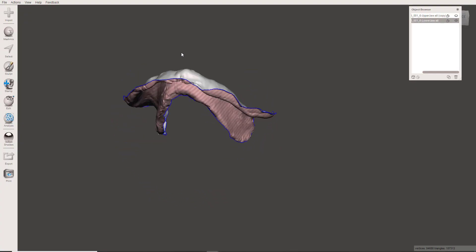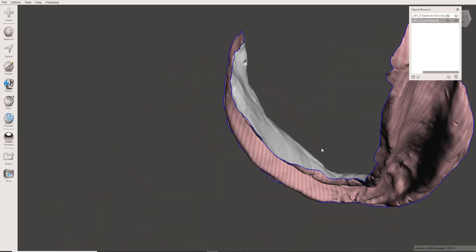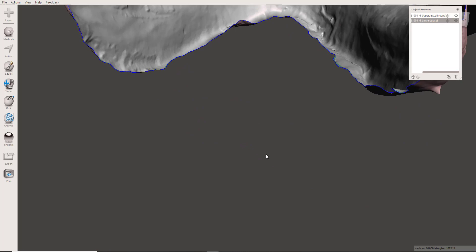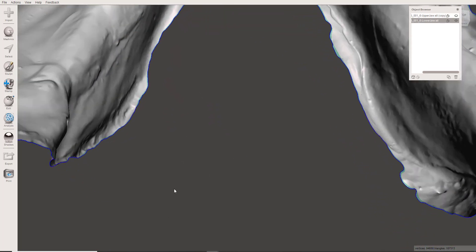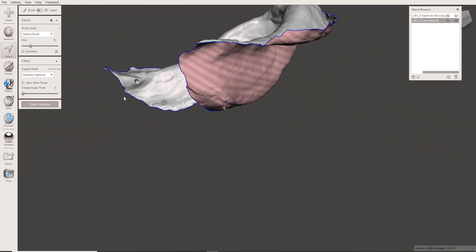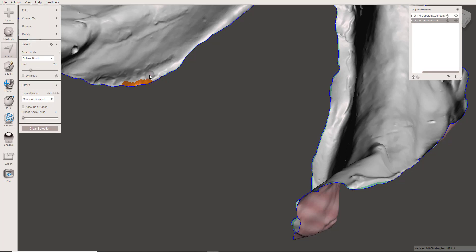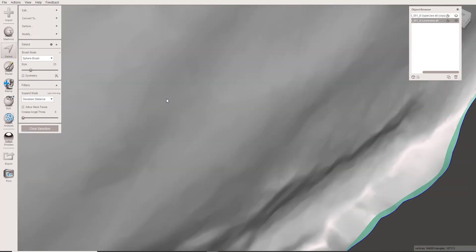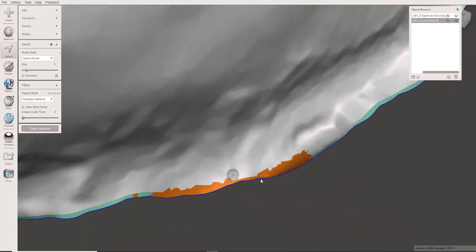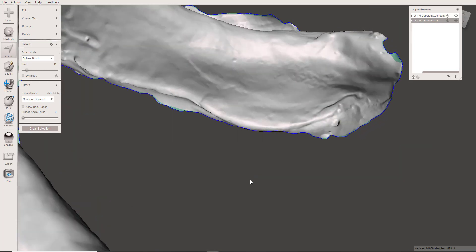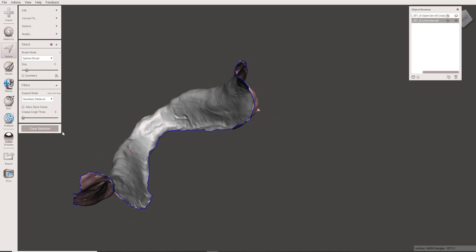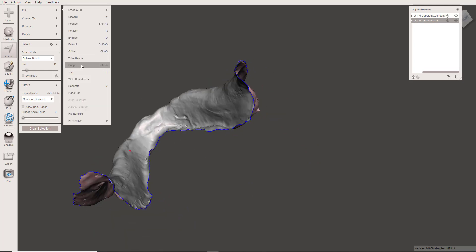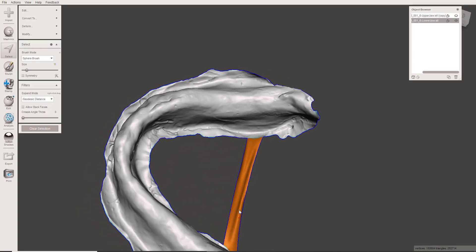And just a real quick addition. I thought about the lowers. The lowers do have one unique attribute that's going to make them slightly different, and that is the tongue space. So before you do that process that I just showed for the upper, for a lower, come down here and close in the tongue space first. What I would suggest is find the deepest spot on the lingual vestibular extension, and just select a piece of that mesh. I need to zoom in closer so I can see better. Get a little piece of that border, and then same over here. Get a piece of that border, and go over here and bridge. You can see that that has bridged.